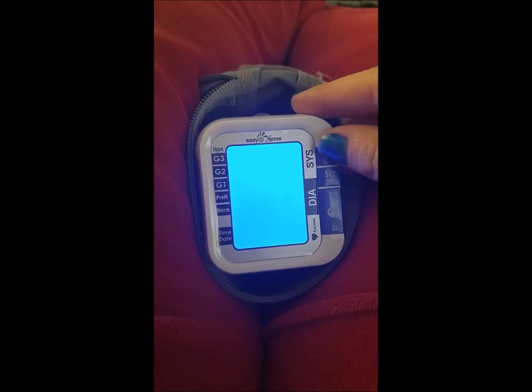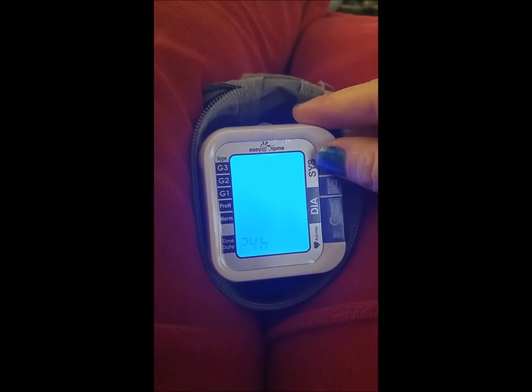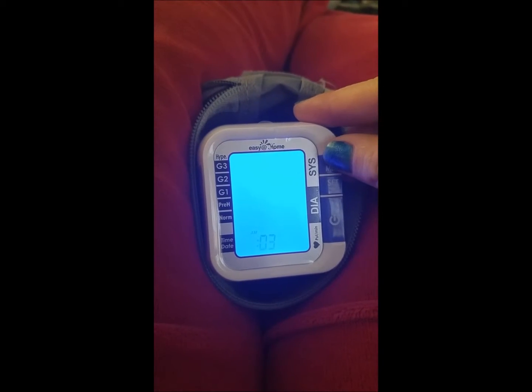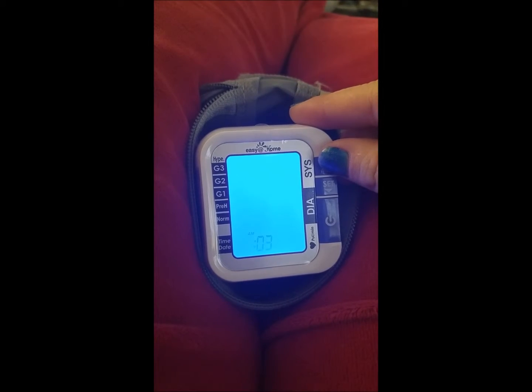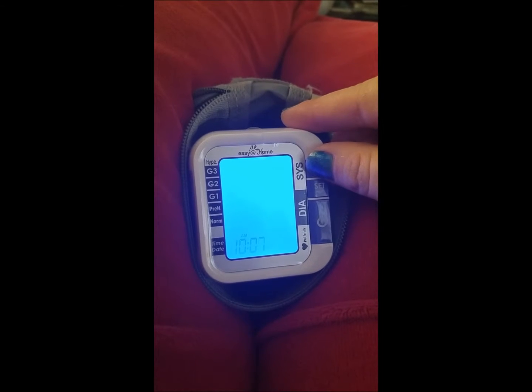Now you can do the time, and right now it is 10:50. You can do this in military time or you can do it in 12-hour time. We're going to do 12, and right now it is 10:50 AM.